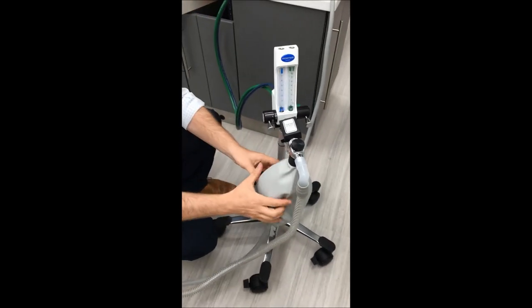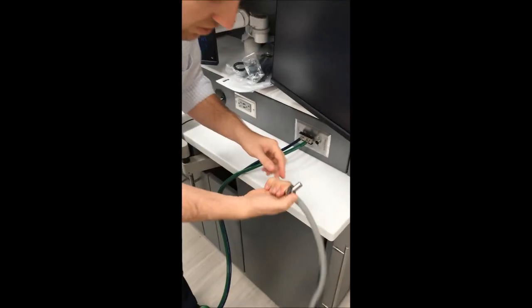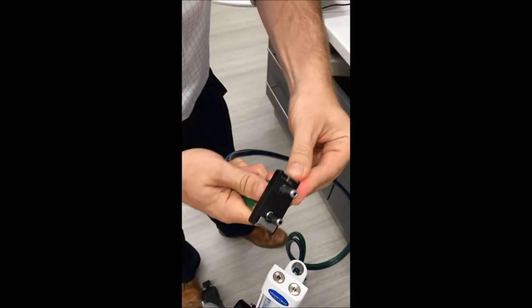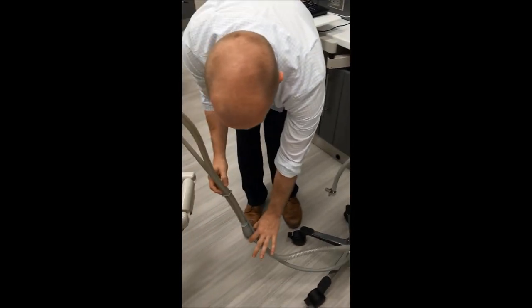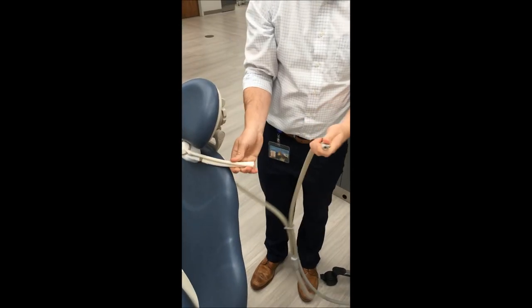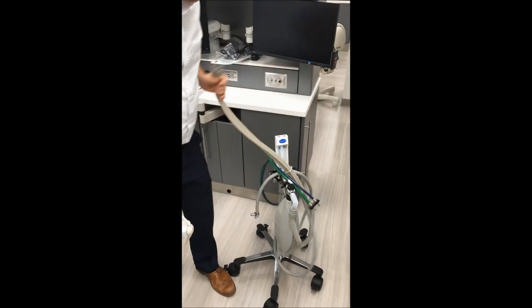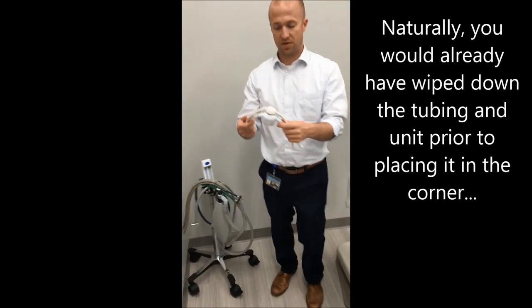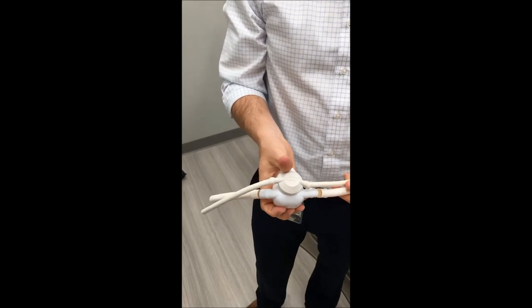When you are done — after the five-minute oxygen flush and seeing the patient — everything is good as far as the bladder. Get these to come off: just push down on the device that hooks it in. This sits to the side; that little hook hooks them in. This stays with the unit — everything up through right here. You should still have these little gray pieces; that gray piece hooks there and sits right here. This, including the nose piece, the hood piece, and the two sides, goes back to oral surgery dispensing.